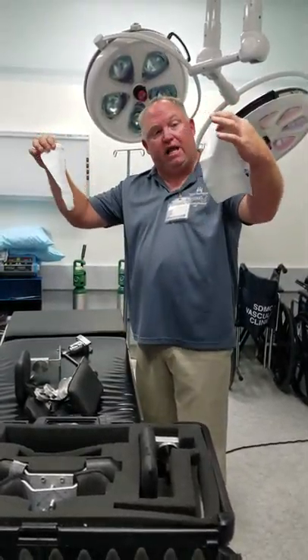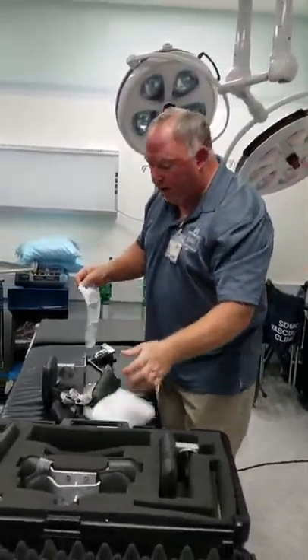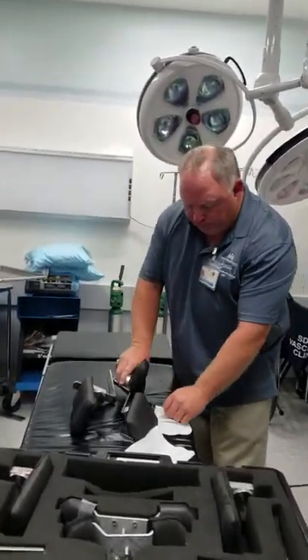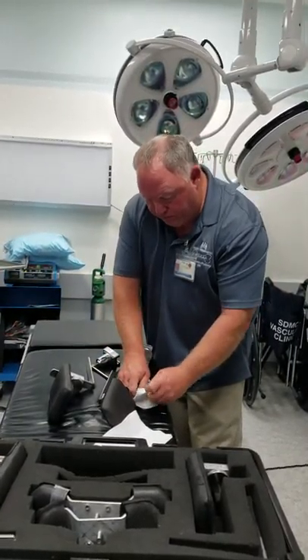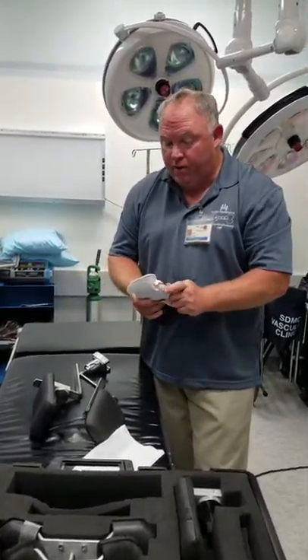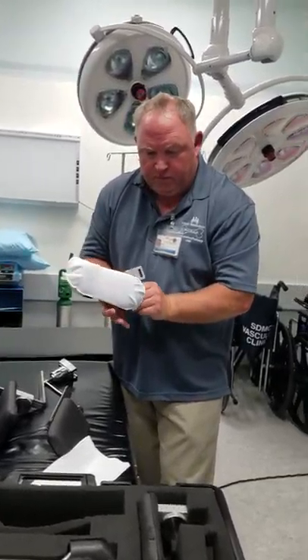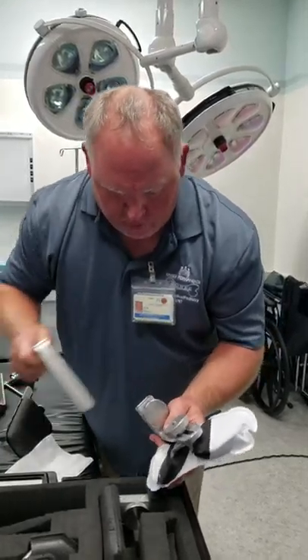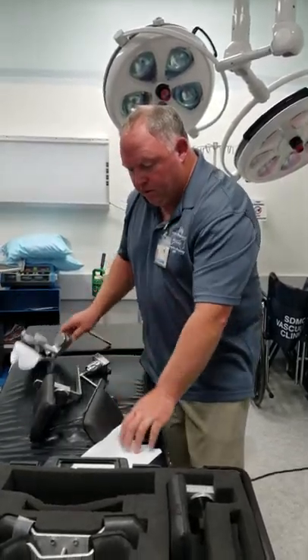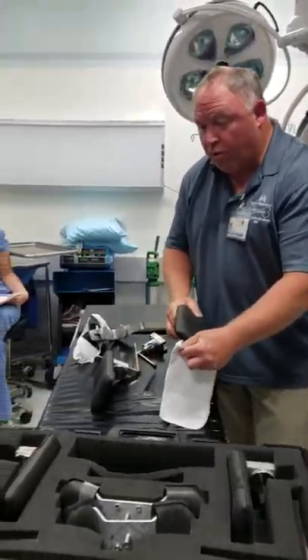Hip grips come with pads already — four pads: one perineal pad and three others. The pad goes over top of the post. This is something you're doing before the patient comes in the room — you want to be ready to go with these set up. We're also going to need an axillary roll — we're going to cover this with a pillowcase.